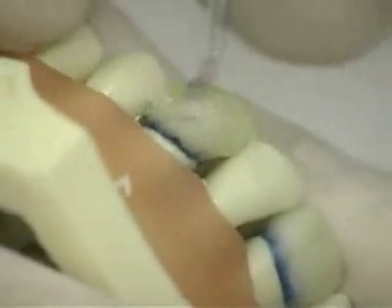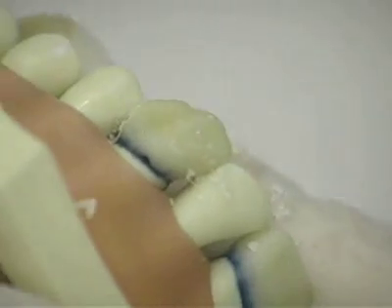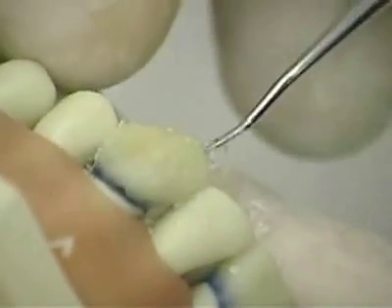Once the general shape and form of the tooth's facial aspect has been restored, use a carver to carve away excess wax and to achieve the final shape. Use a toothbrush to clean the wax carvings off the tooth if necessary. Note that the distal facial aspect of the cuspid is wider than the mesial. Labiolingually, the mesial aspect is thicker. Carve the distal marginal ridge and the mesial marginal ridge until smooth.